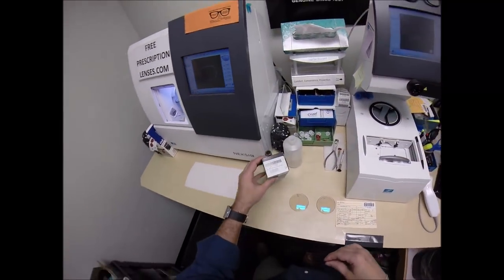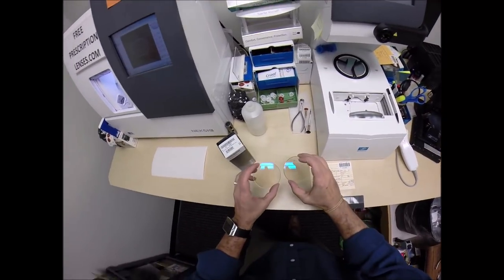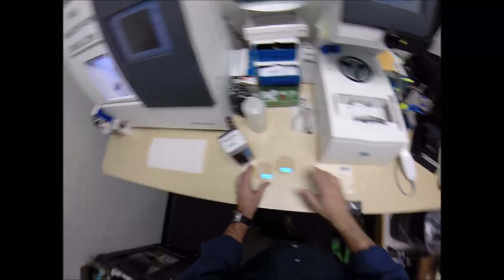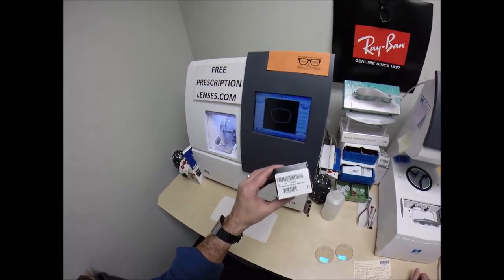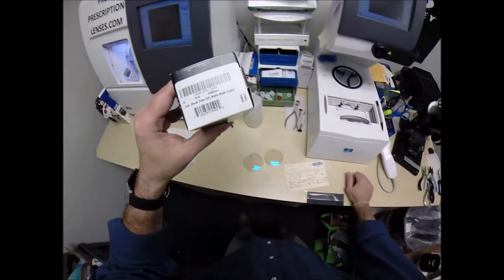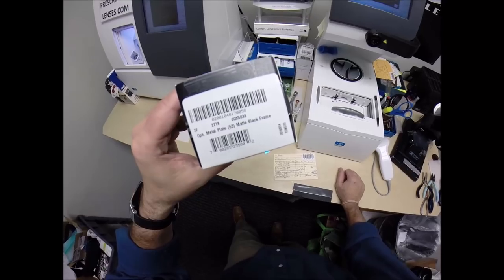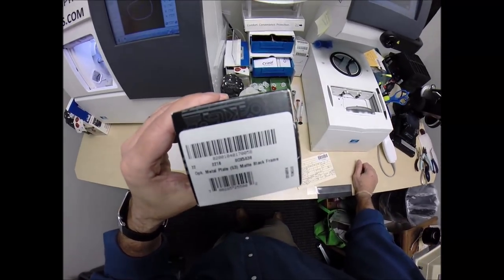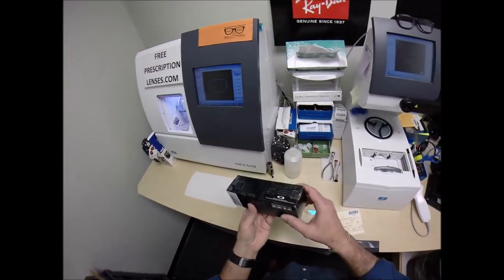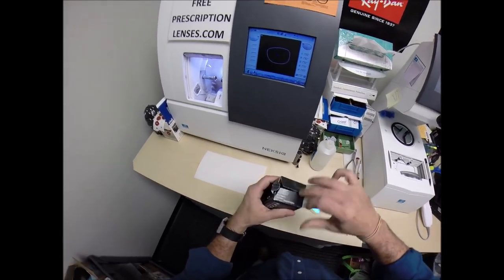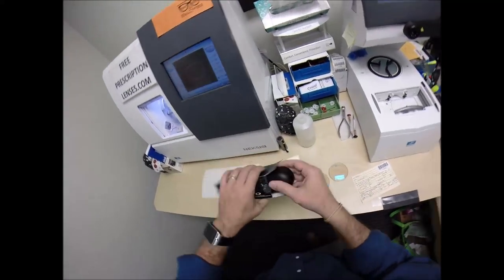Today I'm going to cut the invisible bifocals with Transitions Extra Active Gray and the Blue Flash Mirror for your Oakley. This is the 5038 color 22, the matte black and the 53 eye size. Let me take everything out of the original packaging that you sent to me.